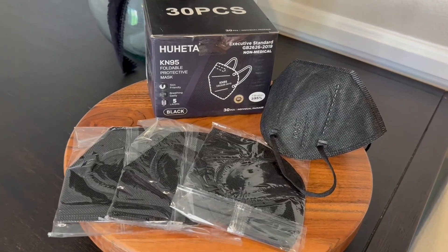Hi folks, this is Heather and today I'm here with an up close look at these KN95 face masks. I'm going to show you them up close and talk about their features, and hopefully this will help you make your decision.